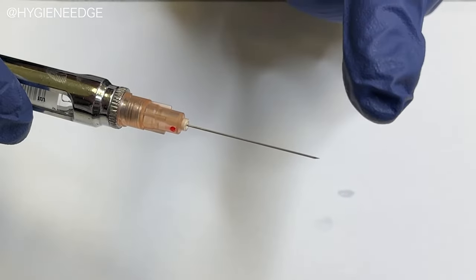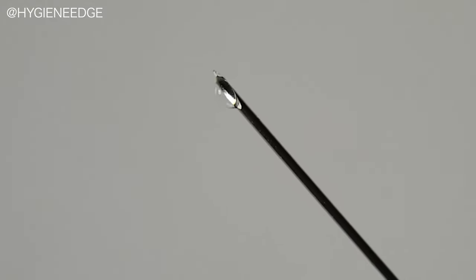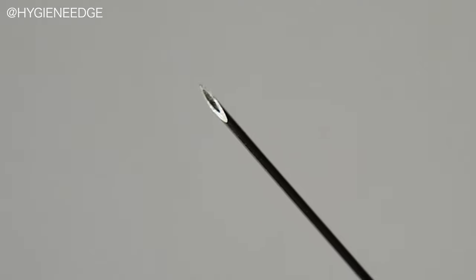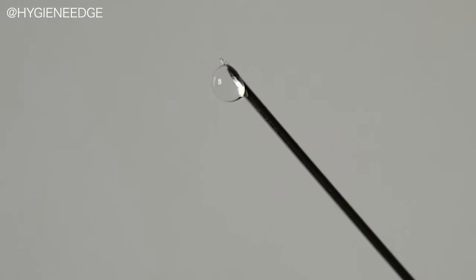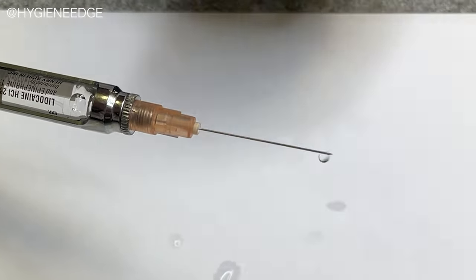And ideally, we want that area towards the bone. So when you dispense your liquid, your anesthesia, the liquid is going to be going towards the bone or towards the foramen. Instead of if it was away, it would be going away from that foramen and potentially not as effective.